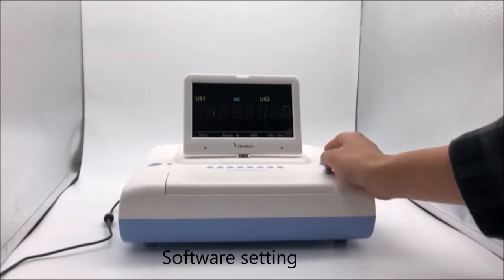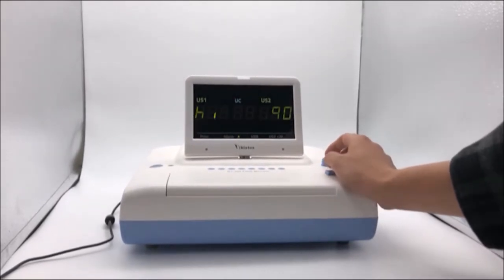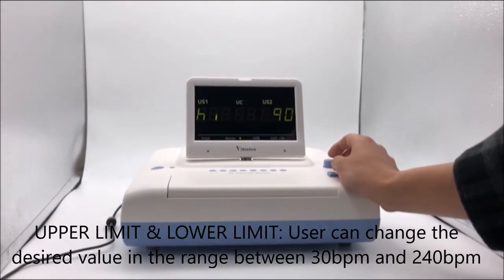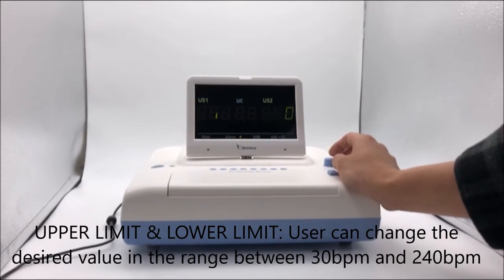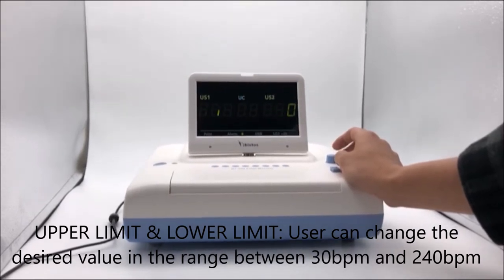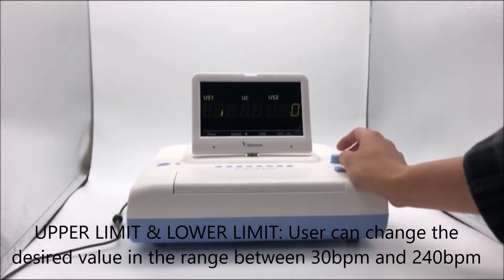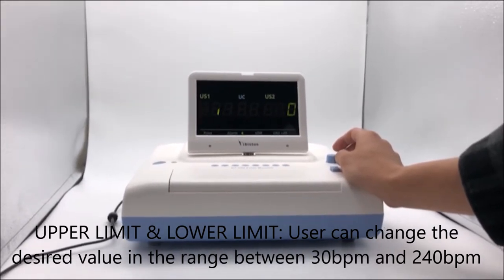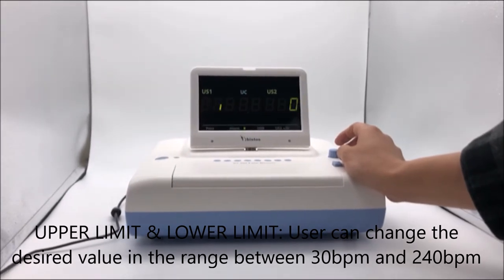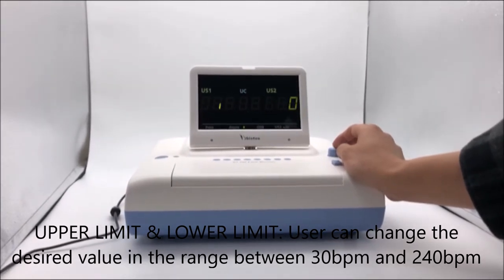Software Setting — Upper limit and lower limit: the user can change the desired FHR value in the range between 30 BPM and 240 BPM.